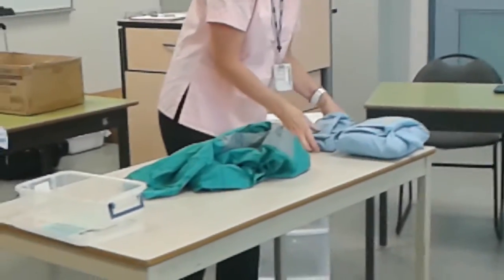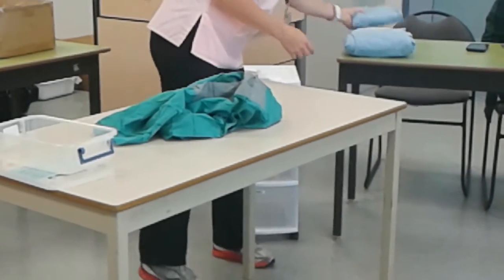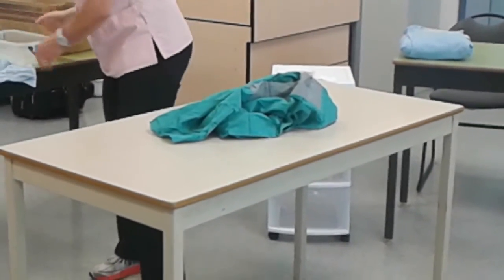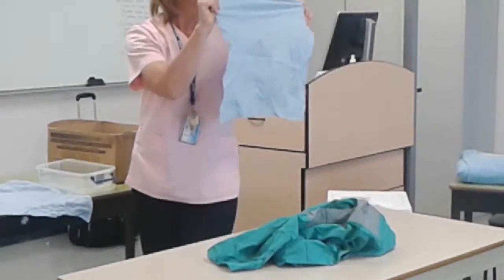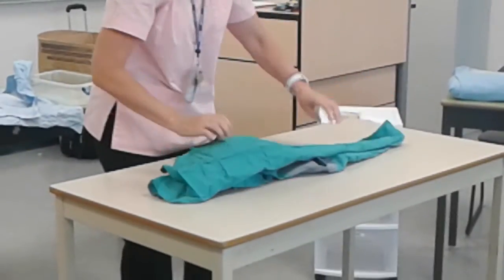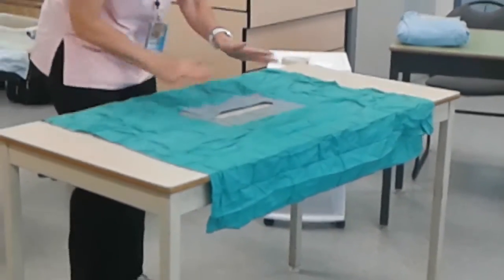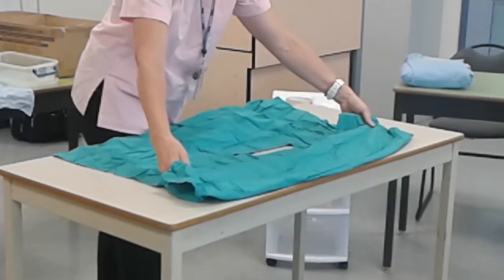So as I've mentioned in class, the right way up is not determined by you, it's determined by the vet — so whether you want to wrap it with the reinforced side on the top or on the bottom, it doesn't matter for here at Sheridan for testing purposes.